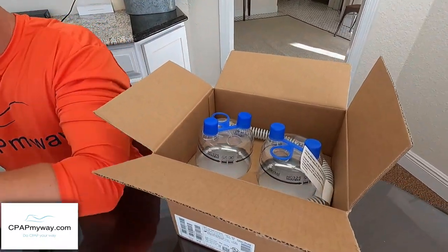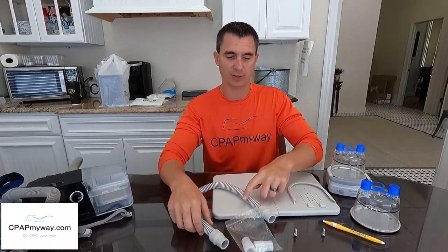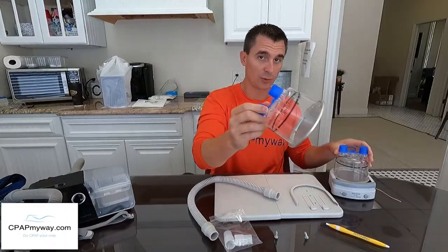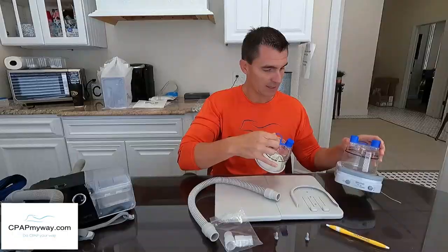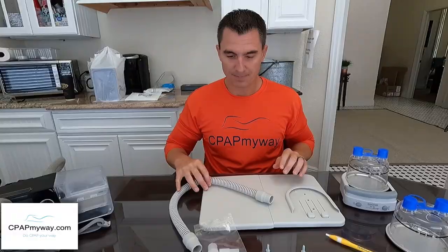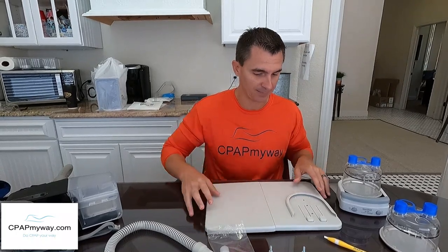With the HC-150 starter kit you're going to get quite a few things in the box: a short adapter tube about 12–14 inches, some adapter pieces, a couple of screws, two water reservoirs, the heater plate for the HC-150, and the tray. The tray is pretty important because you don't want to yank the unit off the nightstand and spill water into the tubing.